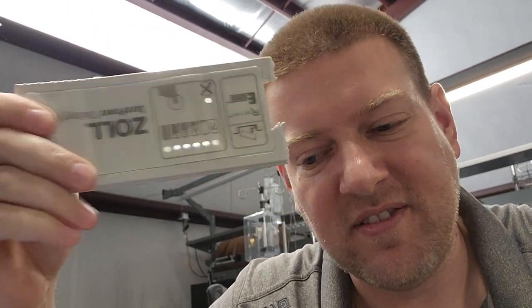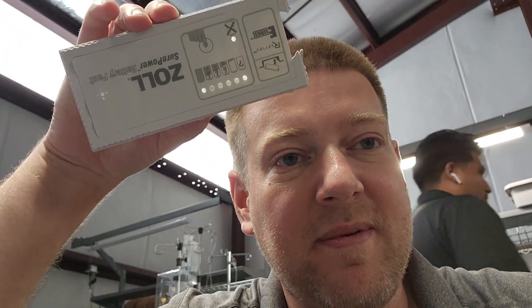That's just one of those things — it's always aggravating to take a loss. I wanted to tear into it and see exactly why these batteries are failing. I'm sure somewhere in the documentation it says they have to be maintained every two or three months. At the same time, they're essentially controlling the obsolescence of the battery through this circuit — whether it has a clock or just continuously runs the battery down past the safe level. Either way, that's 12 batteries at $400-plus each that have to get replaced.